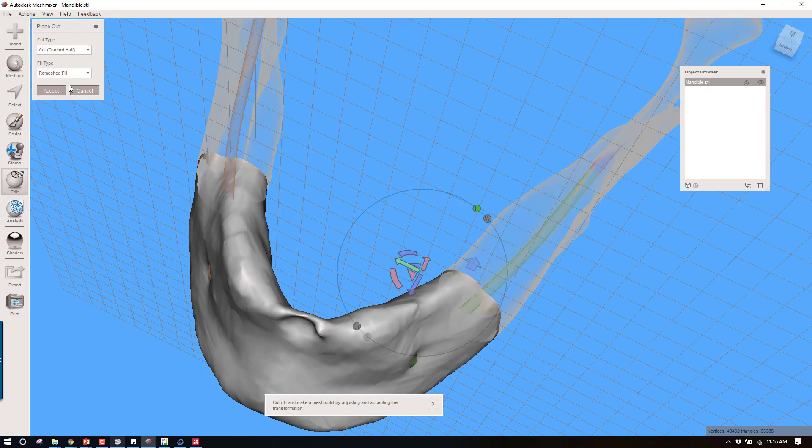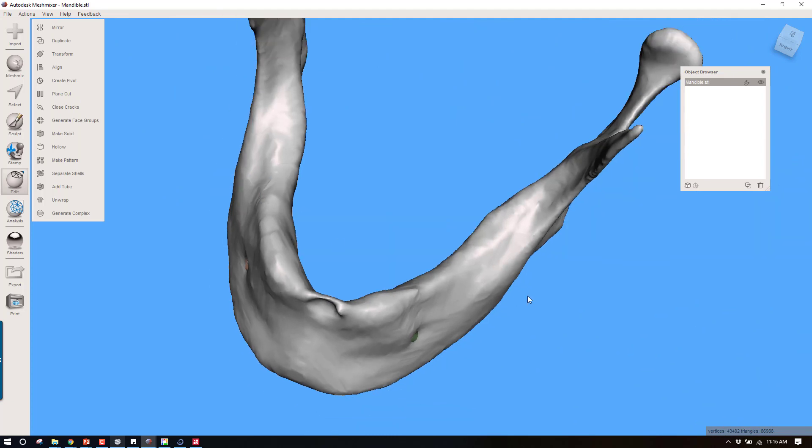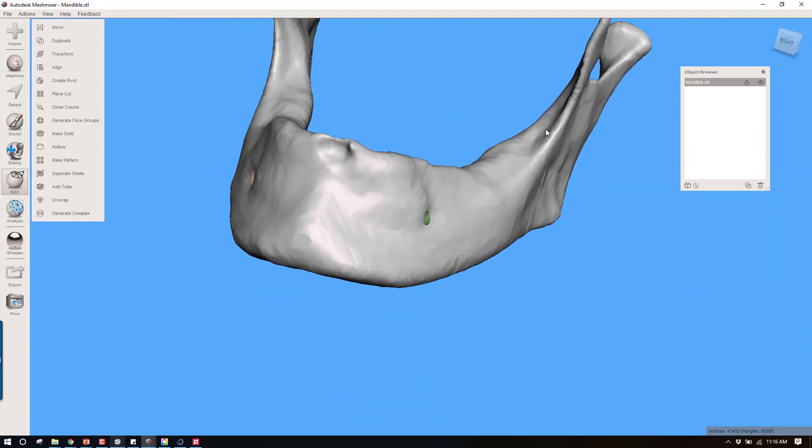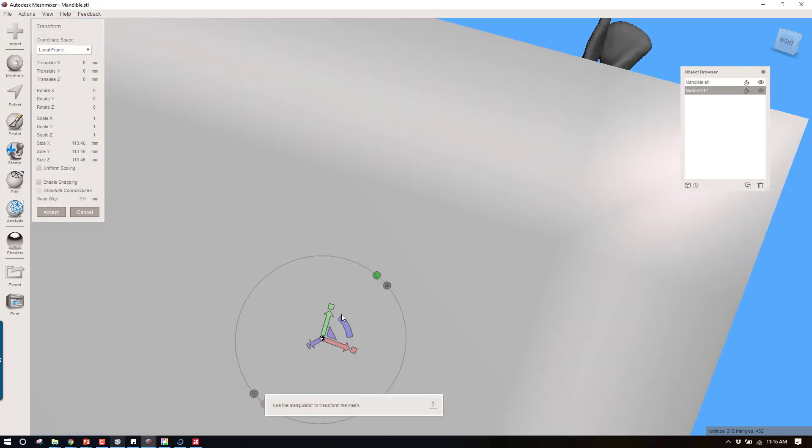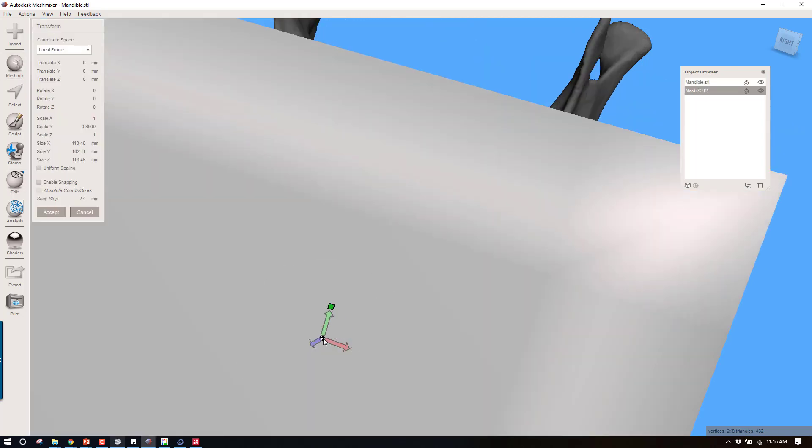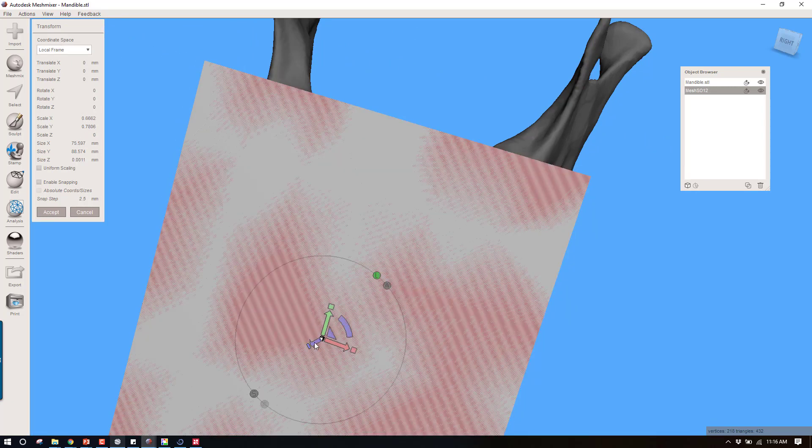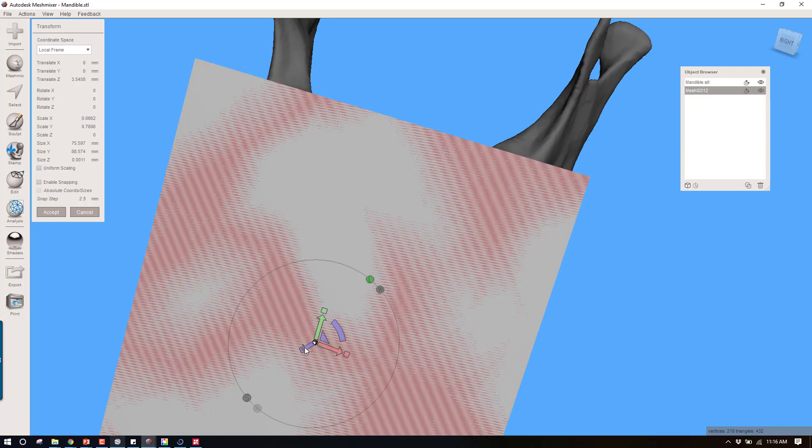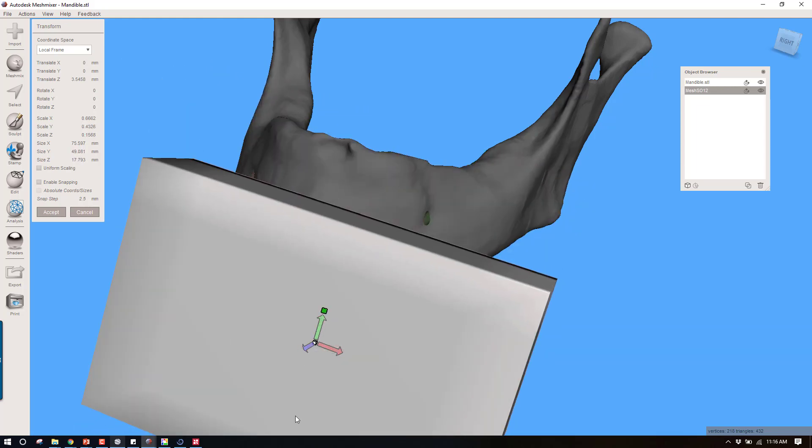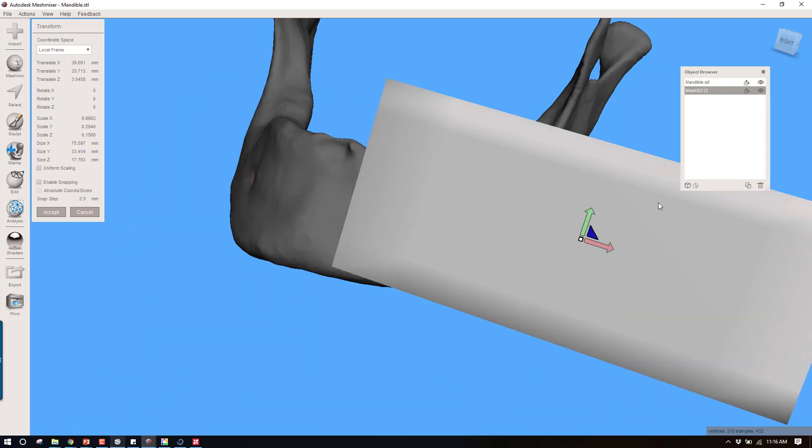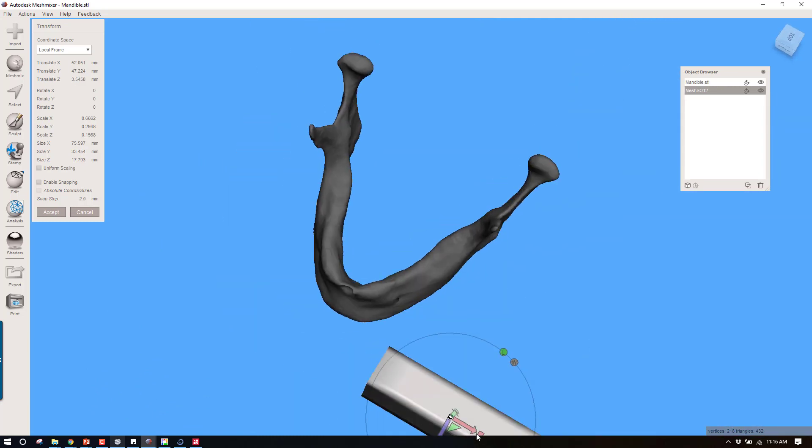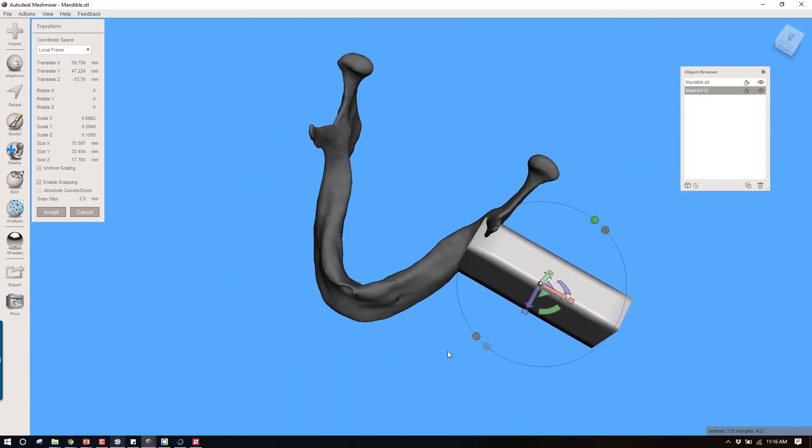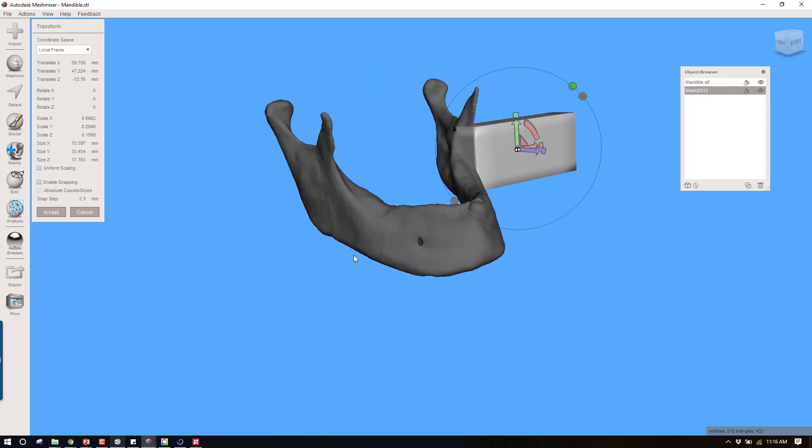If I wanted to do a bone block guide, let's say I made a surgical guide on the mandible and I wanted to make a guide to take out a chunk of the ramus. I could just position a block something like this, scale this down in size, position this wherever it needs to be in the position of my ramus graft, avoiding that nerve. Then do a Boolean subtraction from that guide, leaving me a template where I would need to make the bony outline. There's a lot of useful functions for this Boolean subtraction. And I think as you play with it more and more, you'll continue to find more of them. Alright, thanks.